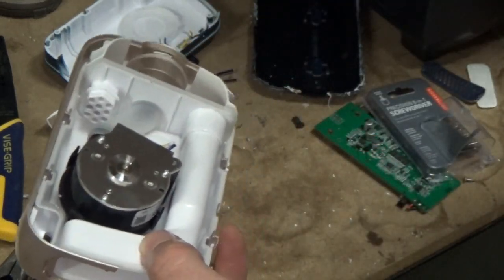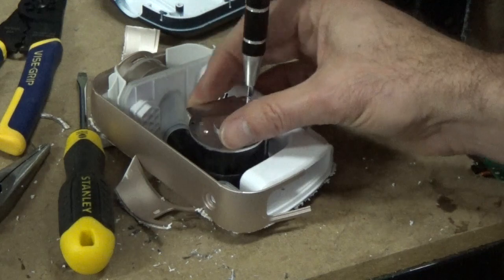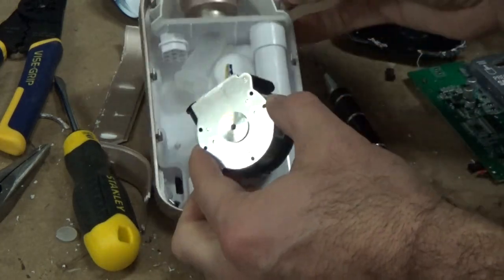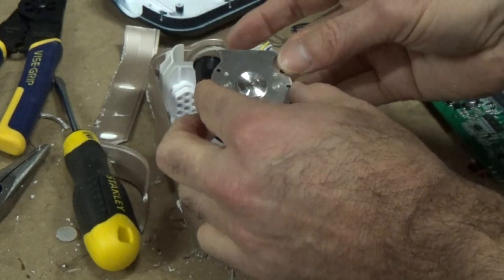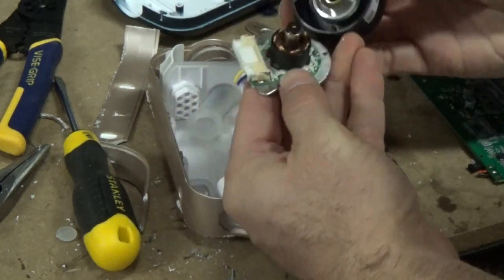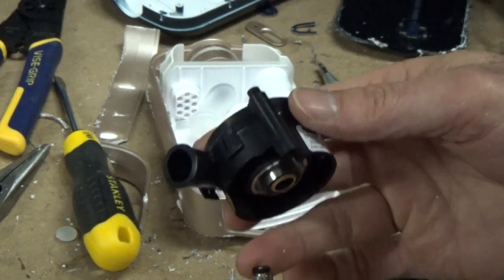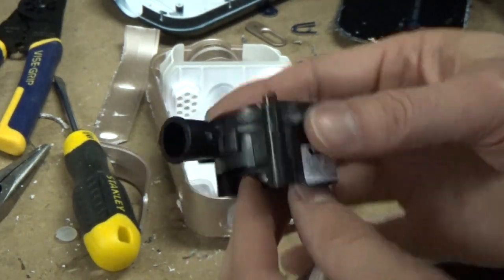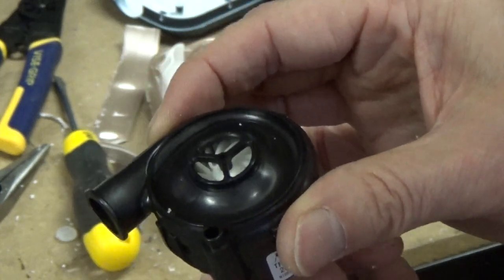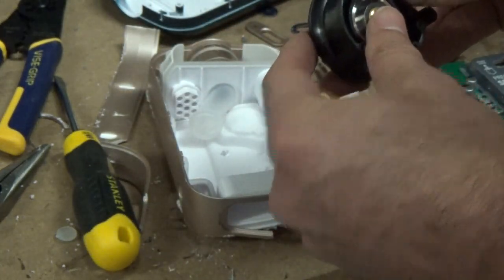Let's open this up too — we've come so far, I think we're all happy now. Better camera angle. You can see my precision craftsmanship. Just pop that little baby off. If you're using it and it burns out in a week, you can open it to this degree of accuracy and replace your NIDEC motor. Let's go ahead and pull this guy apart. Nice little pop. It looks like we have magnetic components, and you can see the blower in here — I believe it's induction. You have all the coils there that rotate around, cause this to spin, and then it's like a turbine.